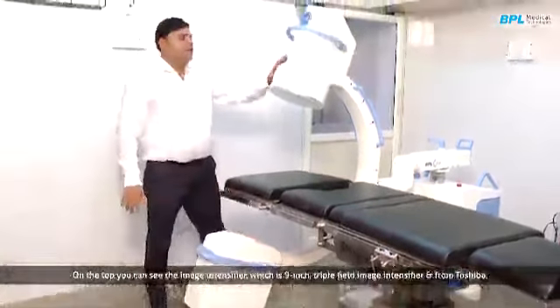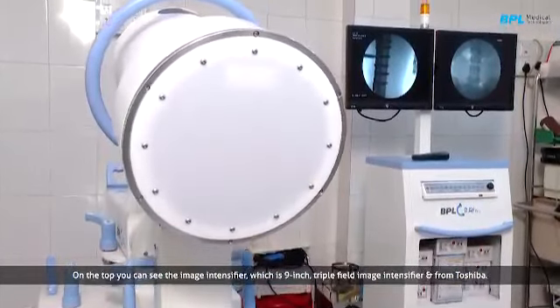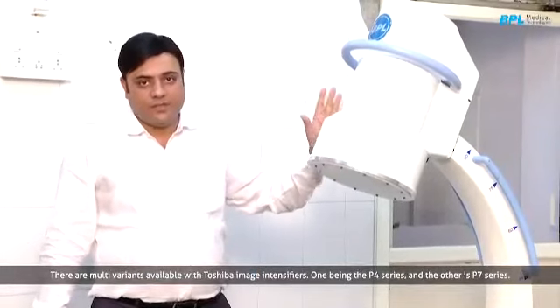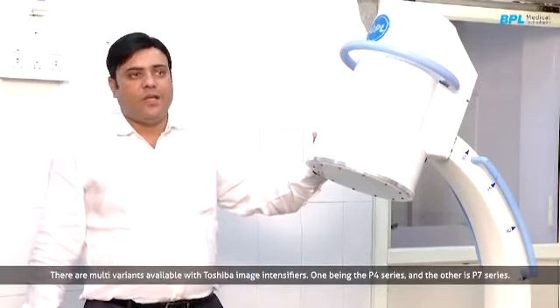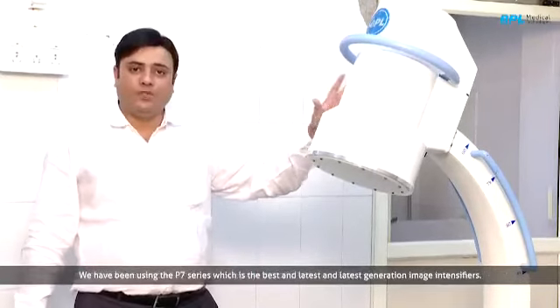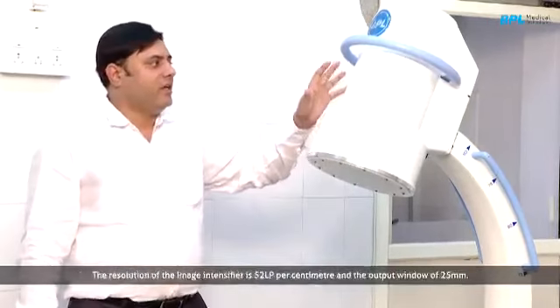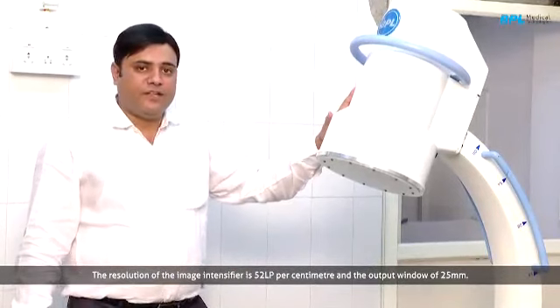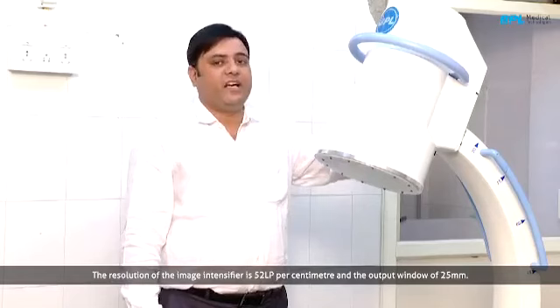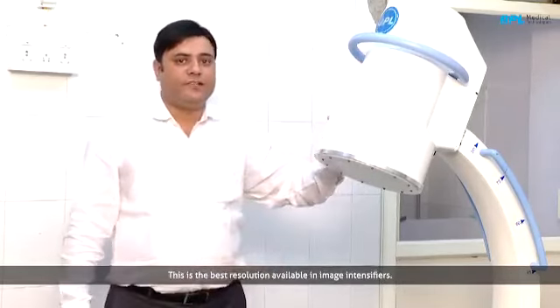On the top side you can see this is the image intensifier, which is a 9-inch triple field image intensifier from Toshiba. There are multiple variants available with Toshiba image intensifier. One is the P4 series and the other is the P7 series. So we have been using the P7 series, which is the best and latest generation image intensifier. The resolution of this image intensifier is 52 LP per centimeter with an output window of 25 mm. So this is the best resolution available in an image intensifier.